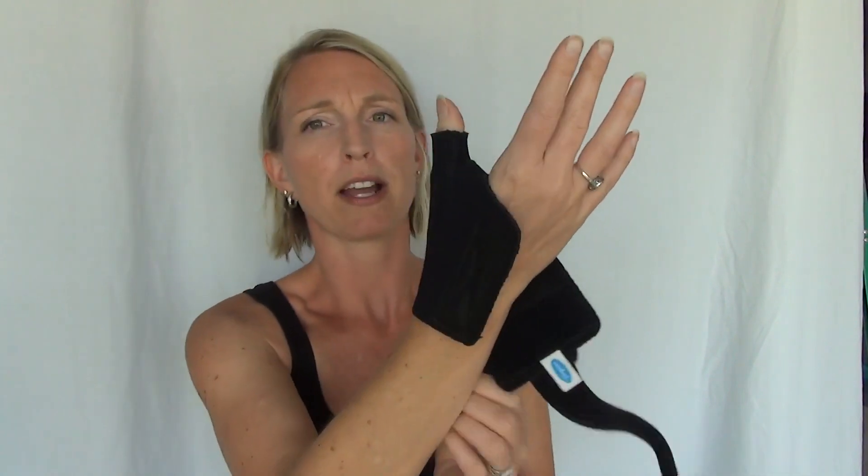The reason I like this is it's nice and snug — not too tight. If it is too tight you can actually trim around the edges, because you want to be able to bend the tip of the thumb. What you do is you just come around and cinch it back there.